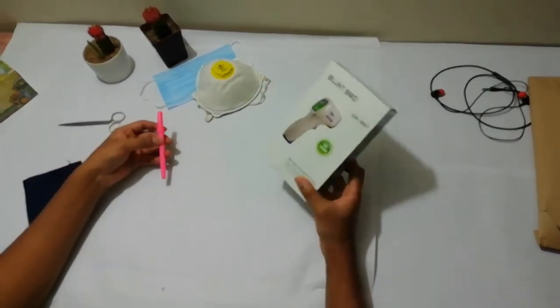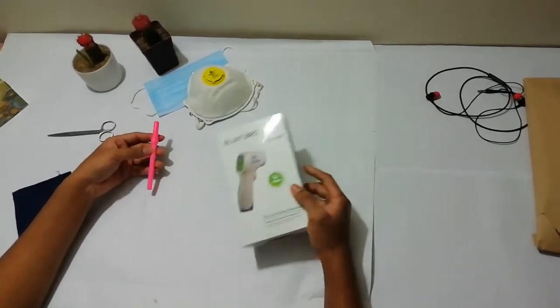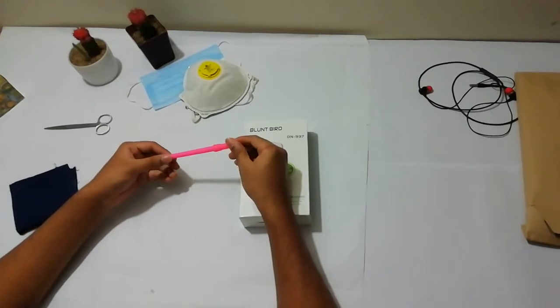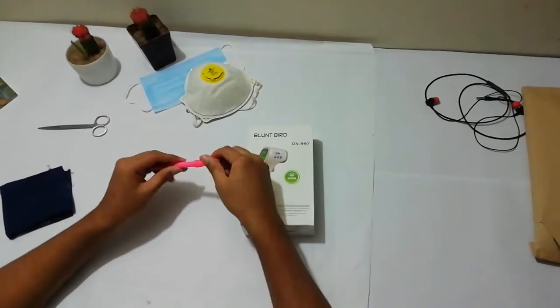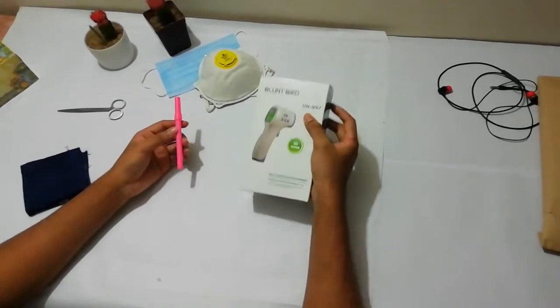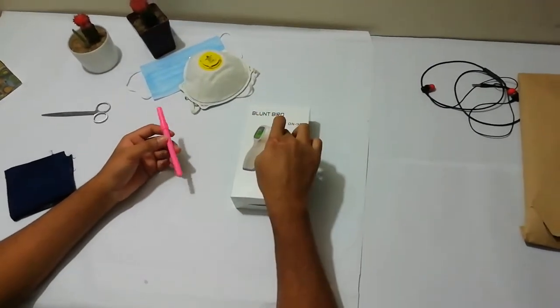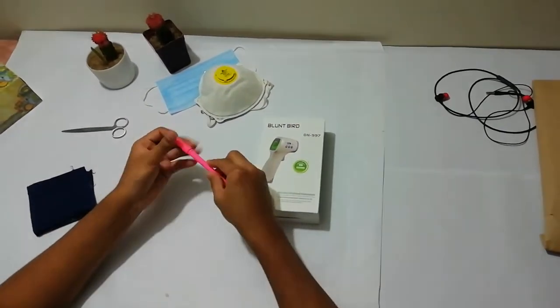Here, I have a thermometer. This is known as non-contact infrared thermometer. And here, I have also another thermometer that we usually use, an ordinary thermometer. In this video, I will explain what is the difference between this one and this one. So, you guys all know about this one. This is common and simple.